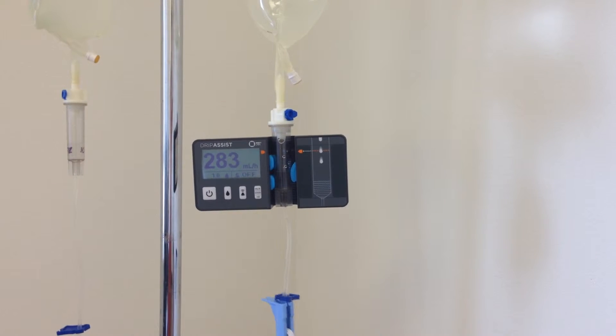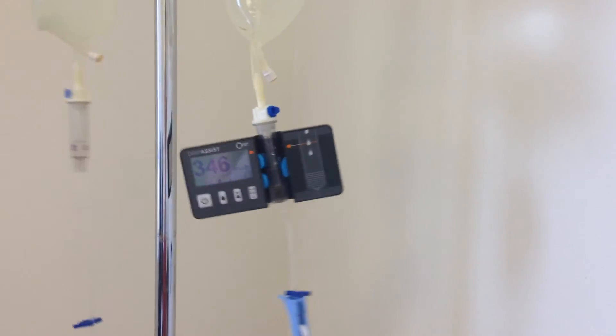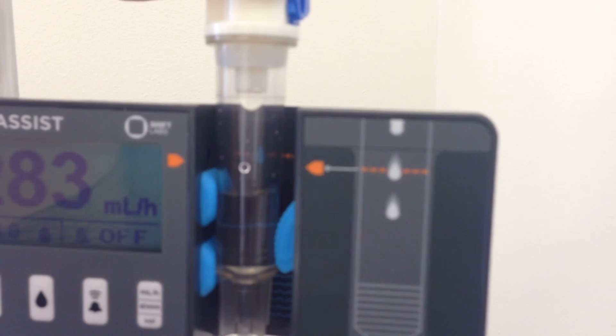Any shaking or swinging of the bag or drip chamber can cause fluid to fall irregularly. If the drip assist is placed too low, the fluid in the chamber may block the sensor, resulting in an incorrect reading. If the drip assist is placed too high, a suspended drop may block the sensor. To prevent this, be sure to position the chamber so the sensor captures a free-falling drop.